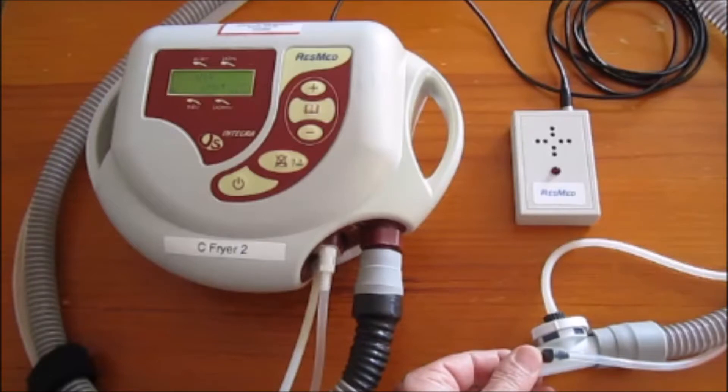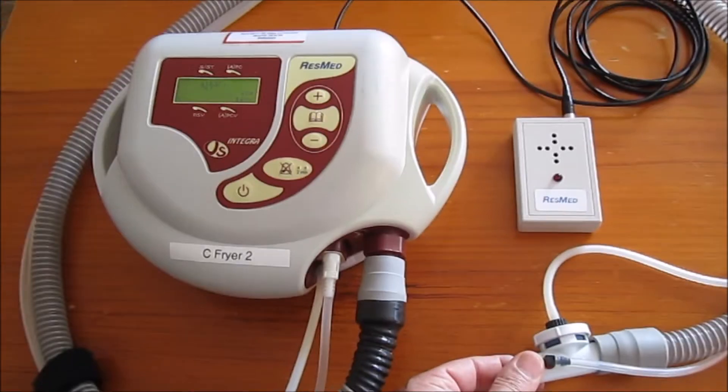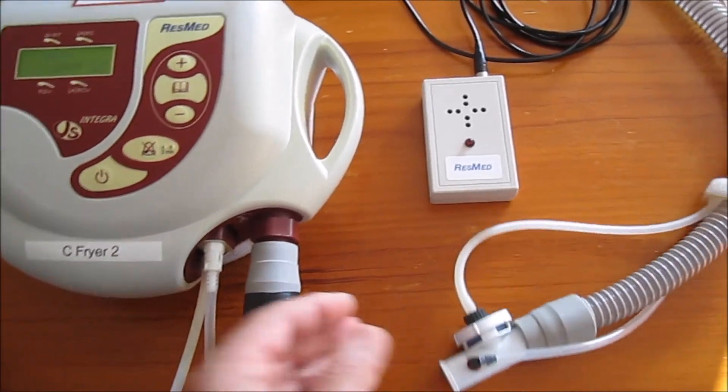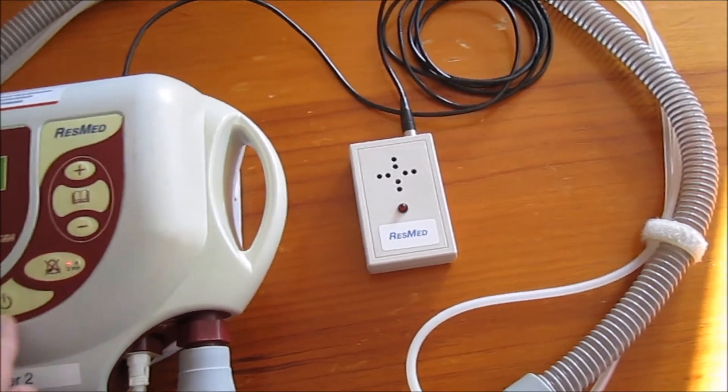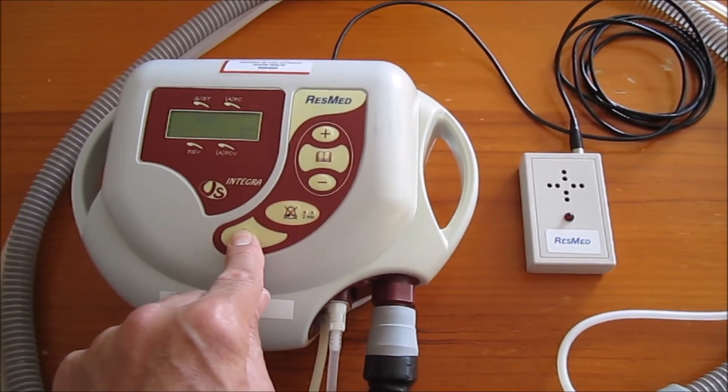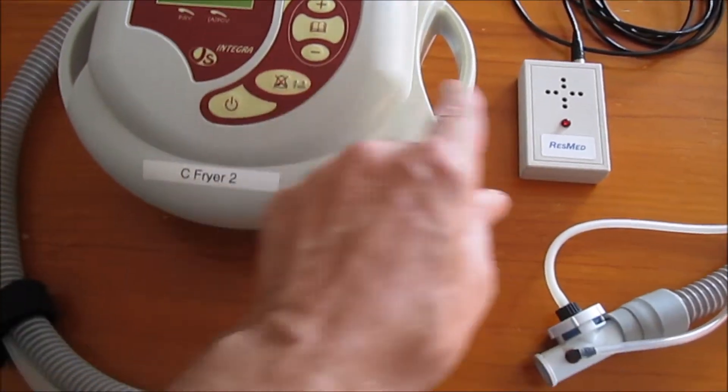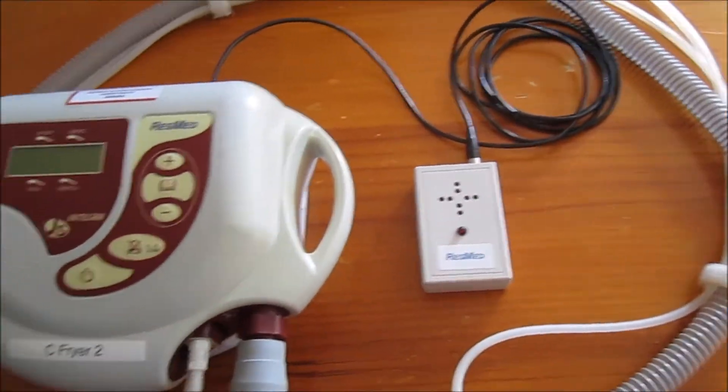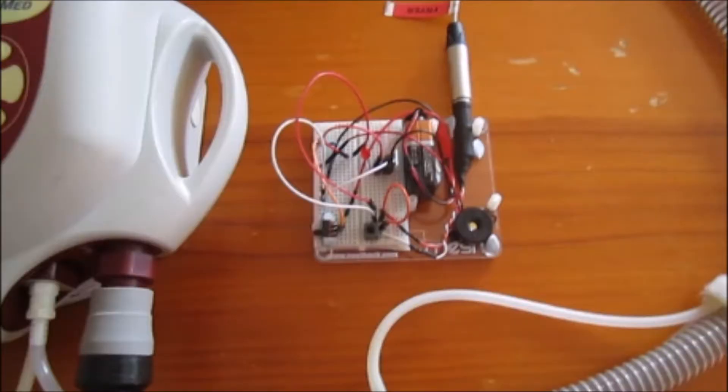By comparison, this is what happens when the ventilator shuts down. We end up with no alarm. The alarm system fails. Now I'm going to shut the ventilator down and demonstrate how this system works. Shutting down, it initially alarms. I reset, I turn off. Now the alarm just turned itself off.